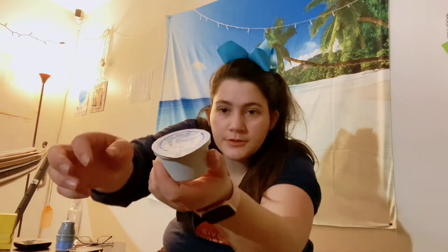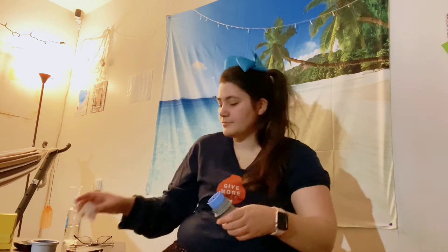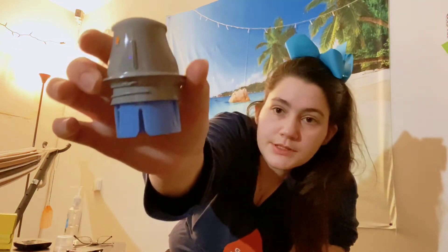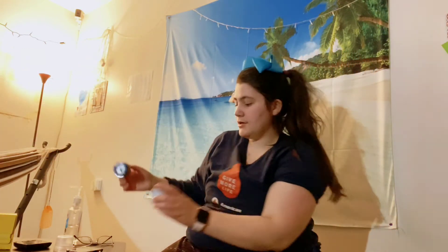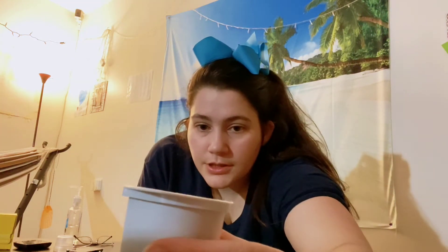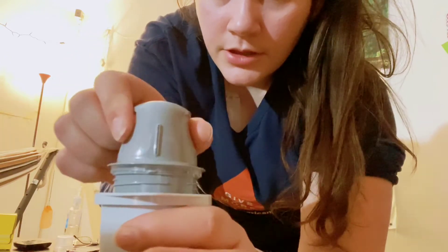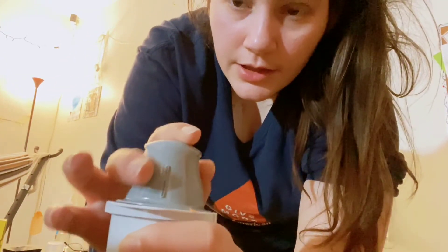Take this piece — it has a nice tab. Pull the tab off like you're opening applesauce, then twist it open like a bottle of water. You're going to see two lines on the pieces. You line those lines up on a flat surface, and then pull straight out.